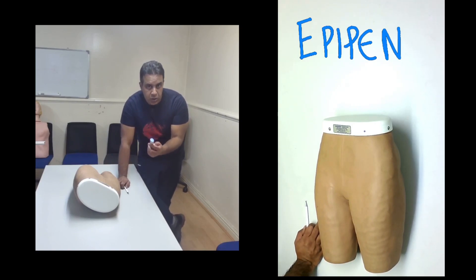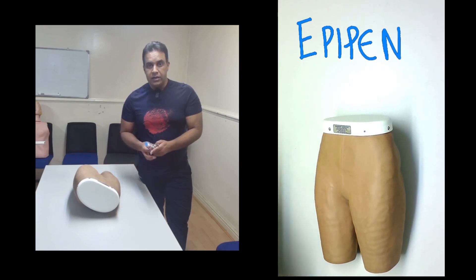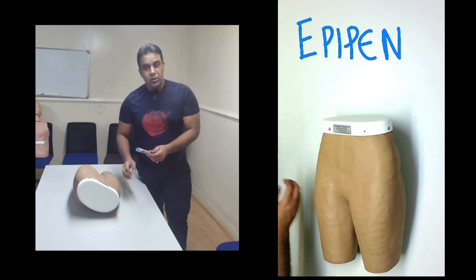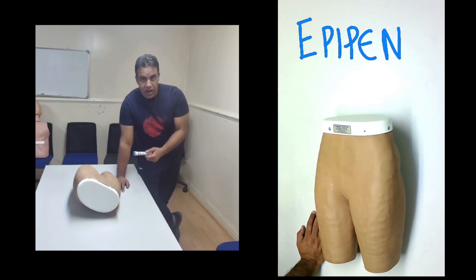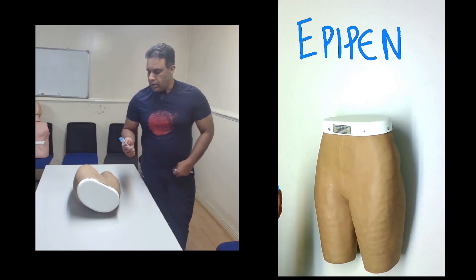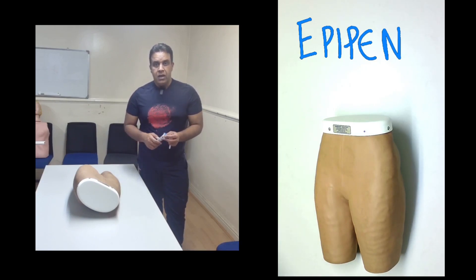There are a few important things to know. You should not keep an EpiPen if it has entered the last six months of its expiry — go and get a new supply from the GP or pharmacist. You can suggest parents put an alarm or maintain a diary to check the expiry regularly and change it before it expires. You can keep the EpiPen at room temperature; avoid extremes of temperature — do not put it in the fridge and do not put it in the sun.